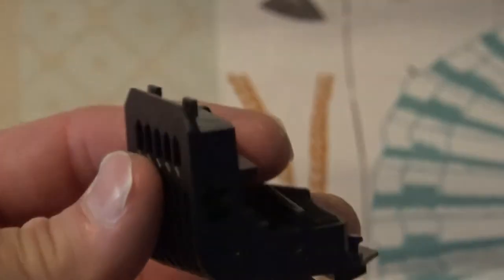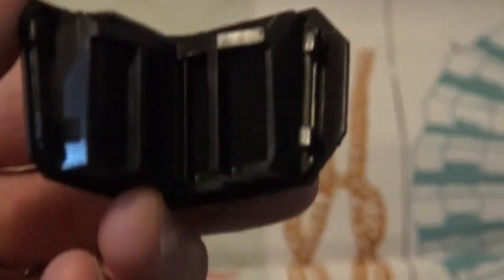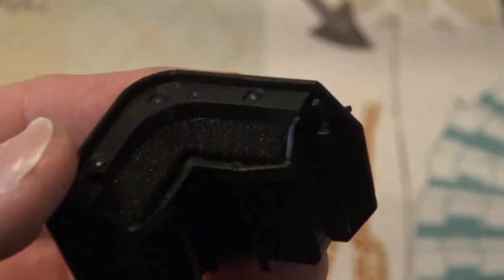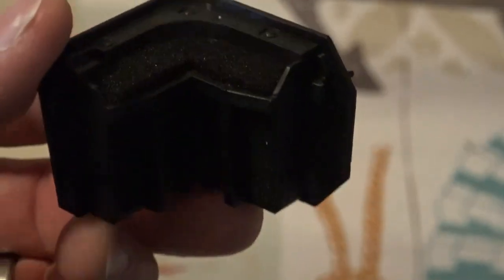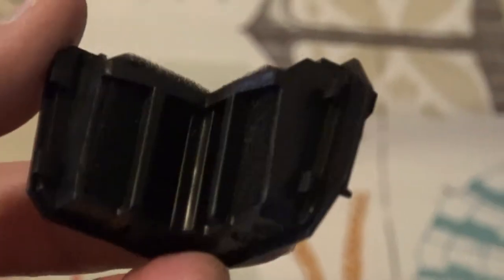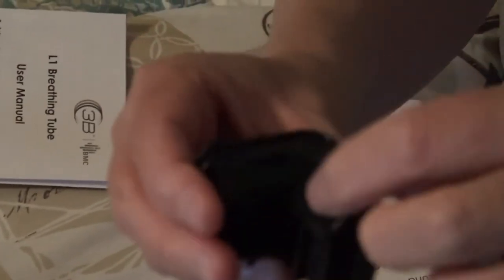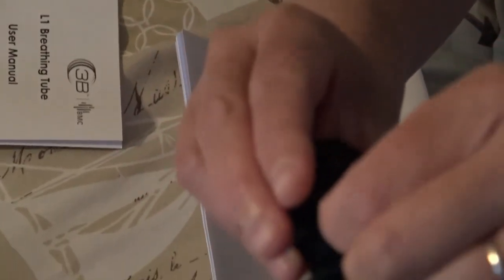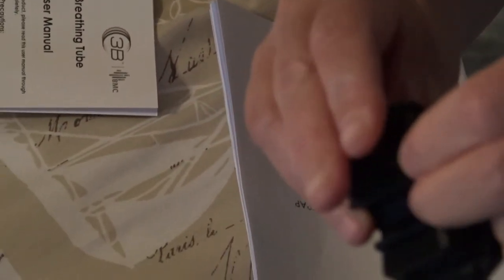I know with the Philips Respironics CPAP machine it was a lot different, whereas this is just one little unit. Like I said, you just take out this little foam piece right here. This is your air filter that you would replace. Obviously we're not going to do that because we don't need to.